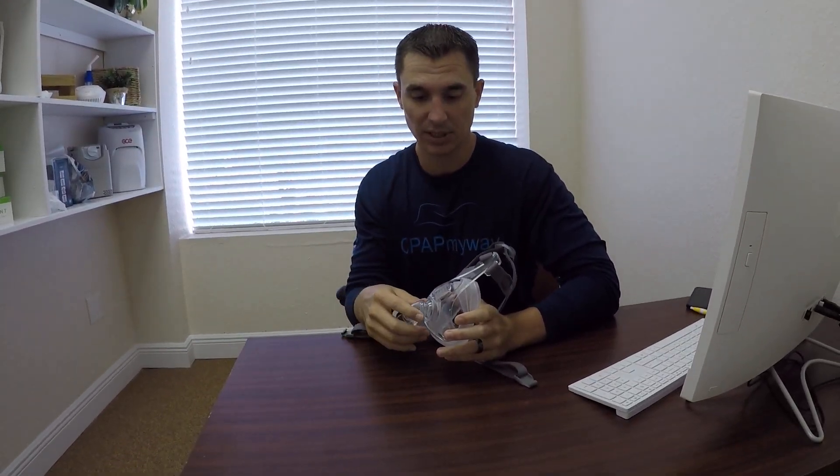You'll notice it's a really quiet mask, and that sealed really well on me obviously. I wouldn't experience any leaks - that was actually at a pressure of 12.